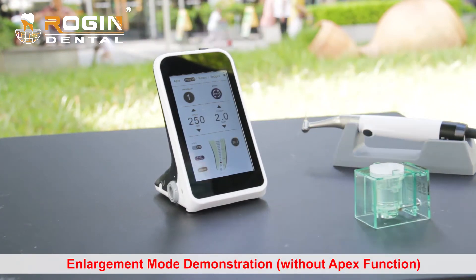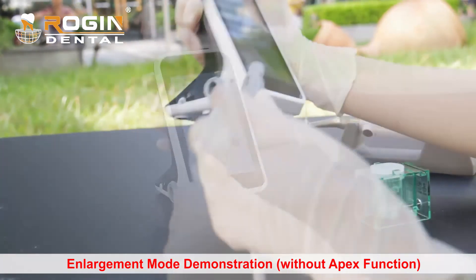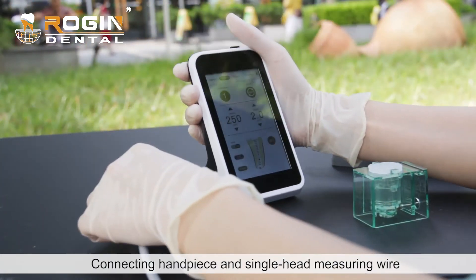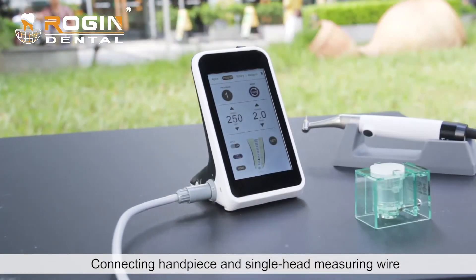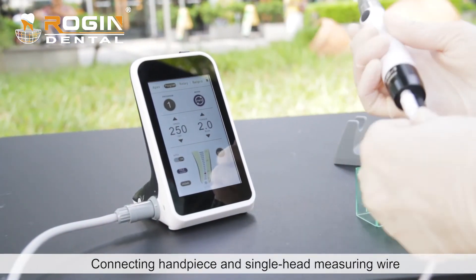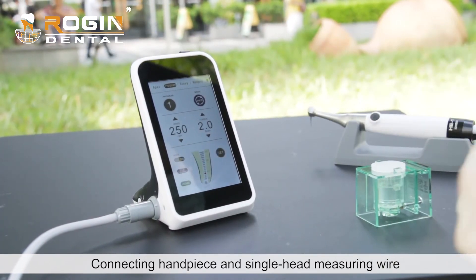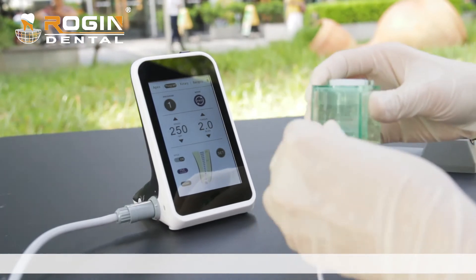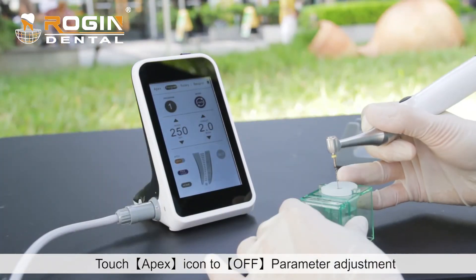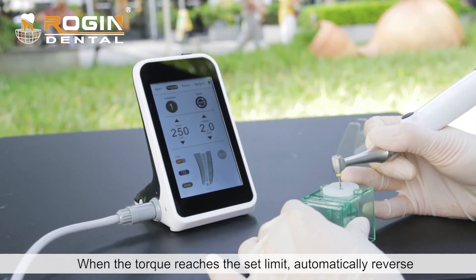Enlargement mode demonstration without the Apex function. Connect the handpiece and single-head measuring wire. In enlargement mode, touch the Apex icon for parameter adjustment. When the torque reaches the set limit, the motor will automatically reverse.